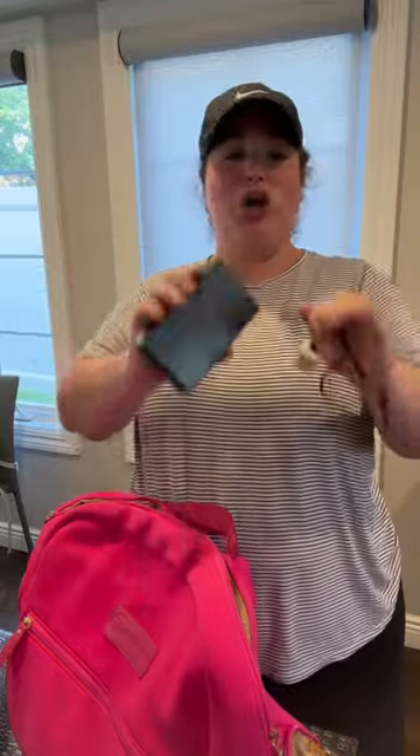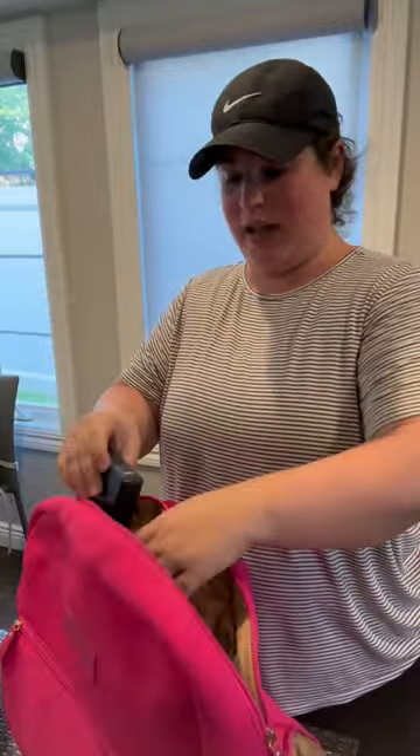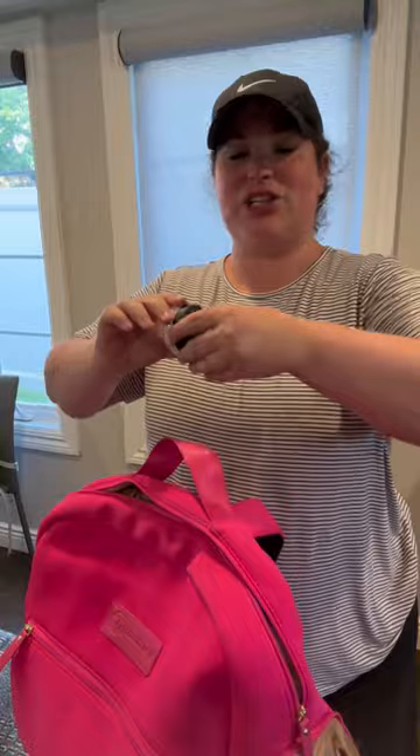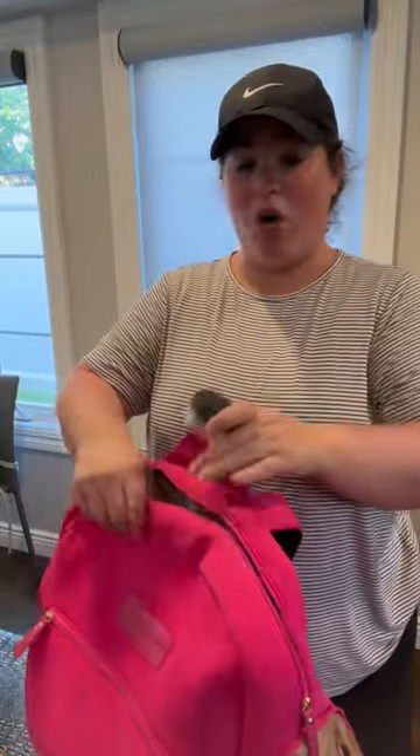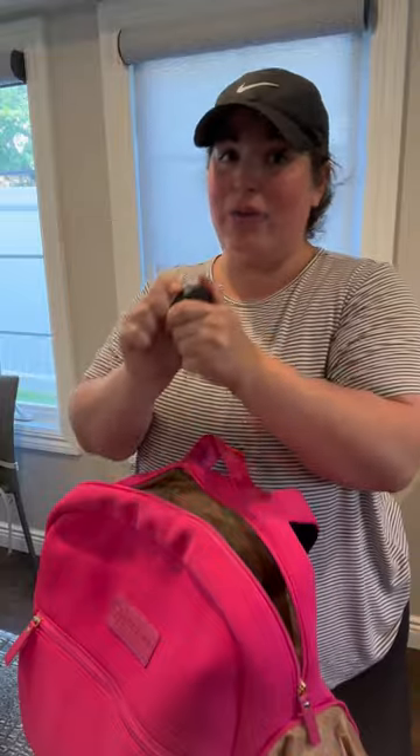Next, we need our pump charger and/or battery pack. You do not want to be stuck somewhere with no juice in that pump — I just keep this with me, no problems. I also take this container with some coconut oil in it. It shuts really tight and never leaks. It fits in the back of the Spectra or I put it in my wet-dry bag right before I pump — I'm always putting it right on my nipples. Coconut oil in the heat will turn into complete liquid, so you want something that seals really, really tight.